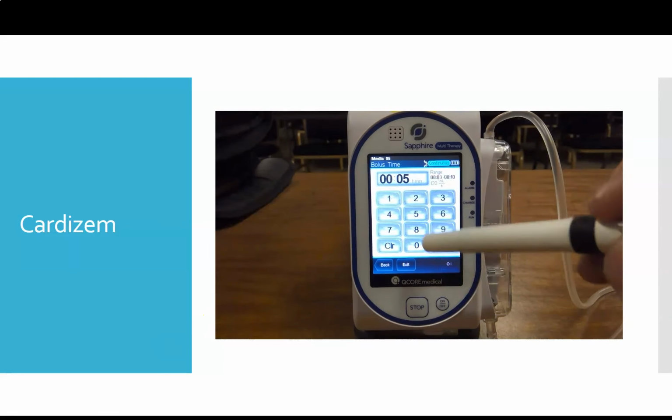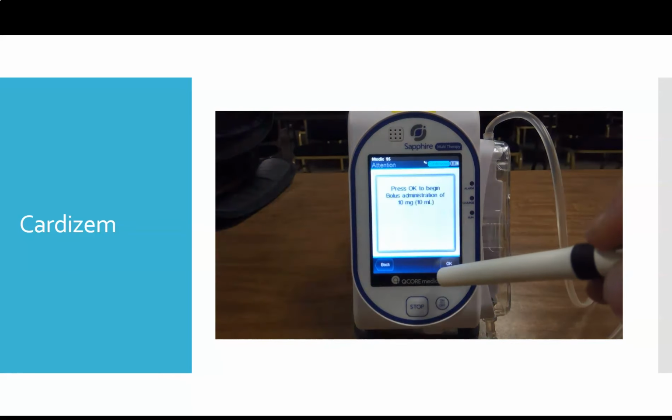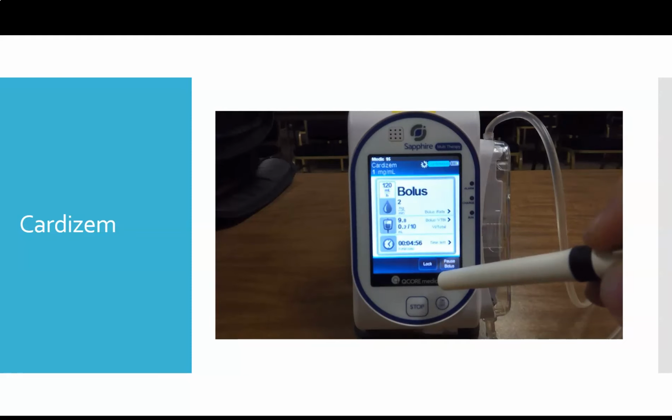Enter in our time. We'll say we're going to do it over 5 minutes. Enter. Confirming how much of our bolus we want to give, 10 milligrams, which is 10 milliliters. The pump will now give the bolus. And the neat thing about this is once the bolus is done, it's going to automatically start your infusion.